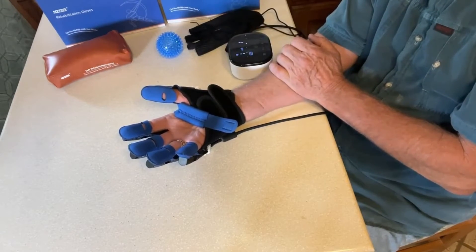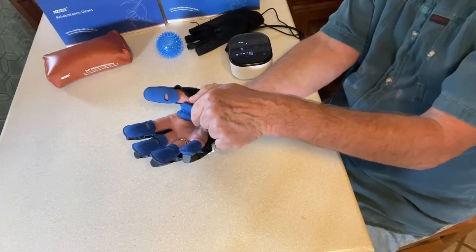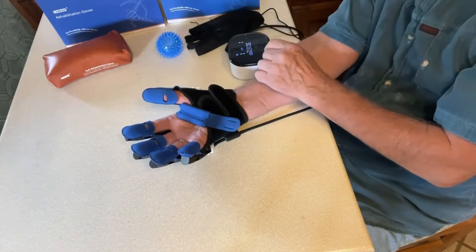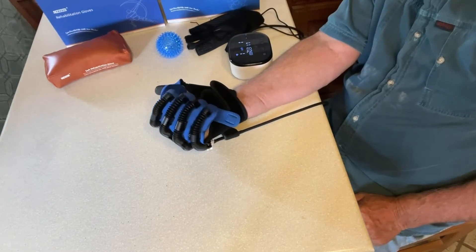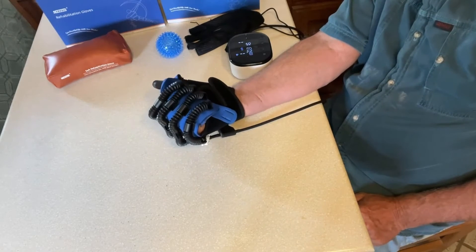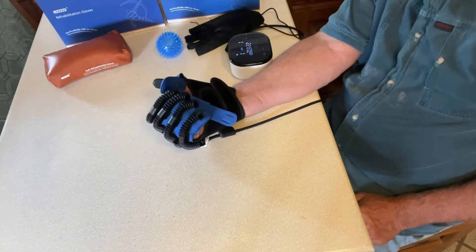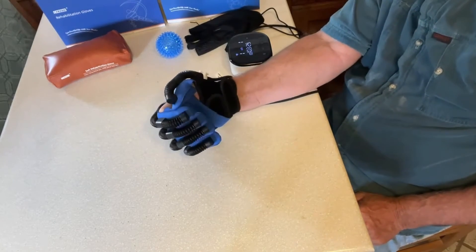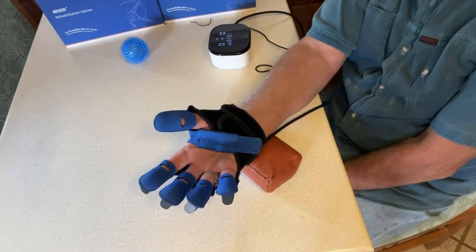Trust that I am in fact not doing this with my hand — it is the glove doing it. This is not a debilitated hand, but I'm not doing this. It's comfortable, definitely stretching out my fingers and making a fist. I'm gonna call that punching mode. We can use this little pad to lay on to make it more comfortable.